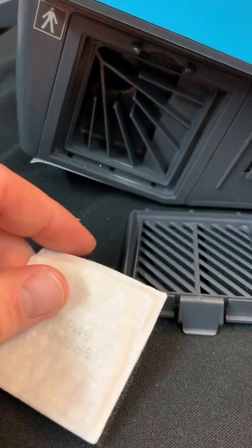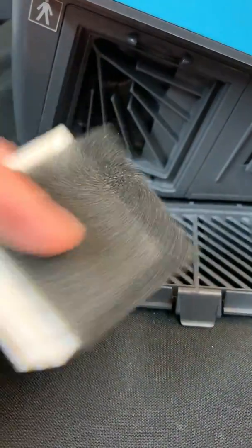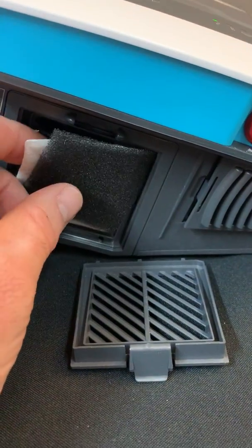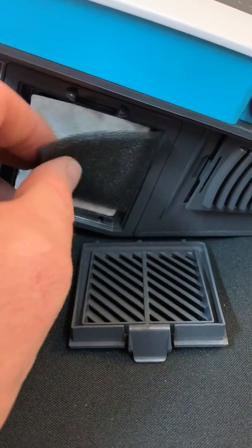These two filters — the black carbon filter is required and the HEPA is optional — and this is the air inlet compartment that houses those filters.